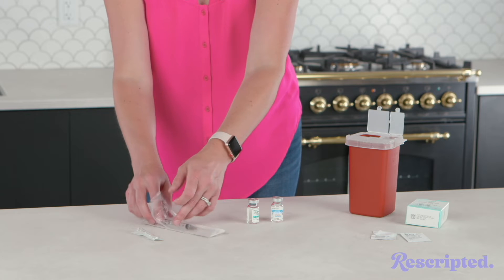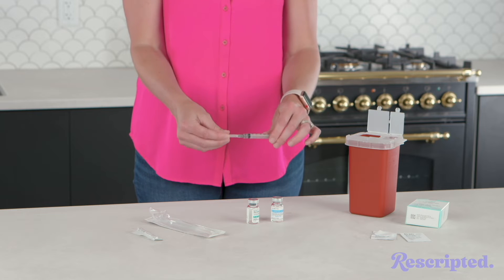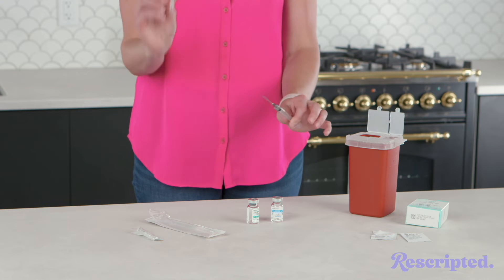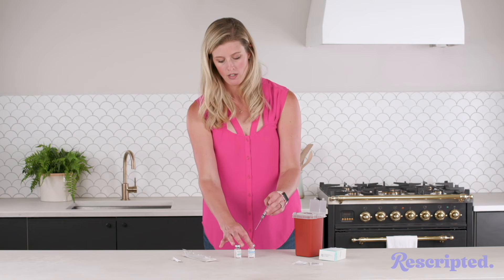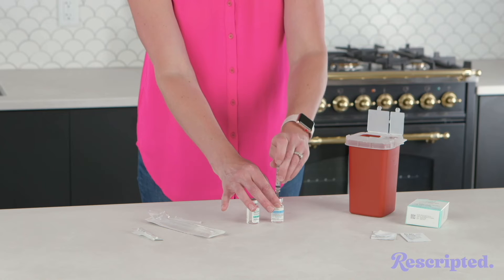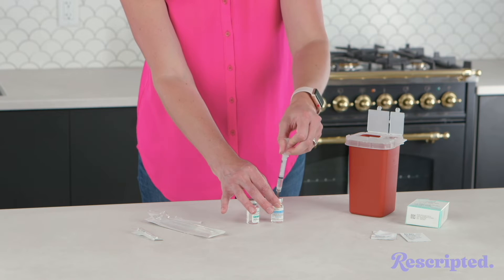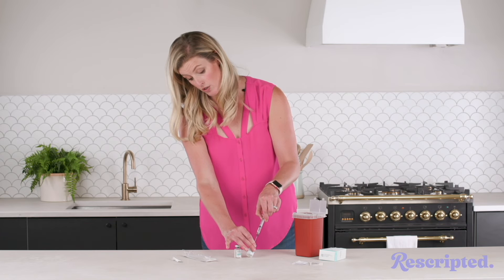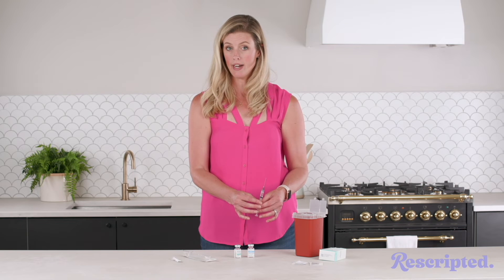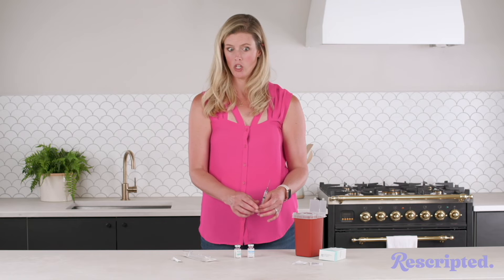I'm gonna open up my mixing syringe and needle — they came together, sometimes they don't, this one did. So I'm just gonna pop the top off and go right into the bacteriostatic water. Plunge that in and just draw back — I'm gonna draw back to one milliliter. Depending on your dosing this might not be one milliliter, so be aware that this number could change.